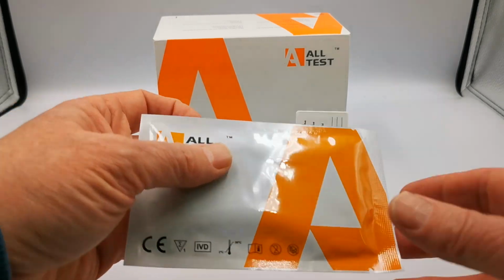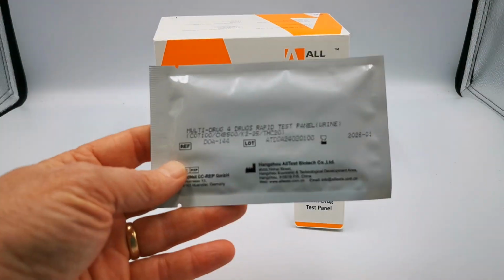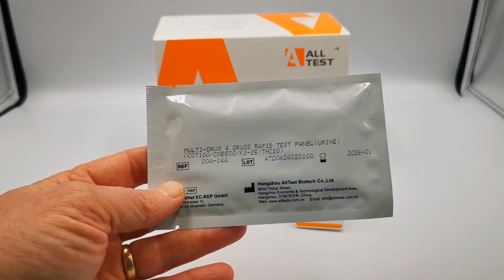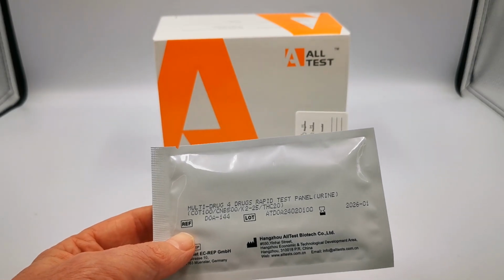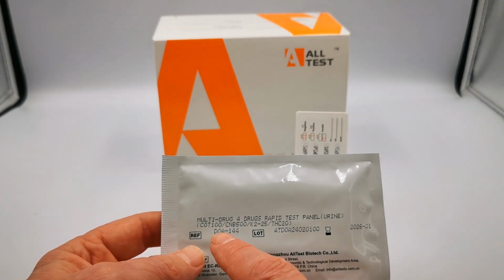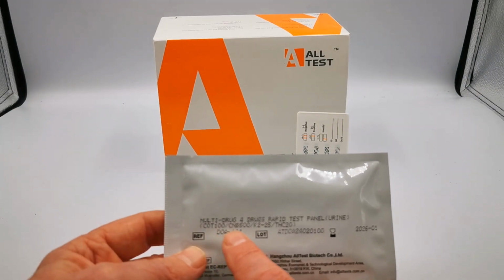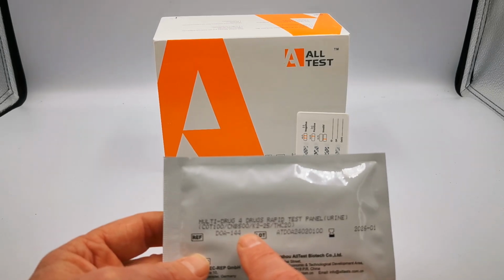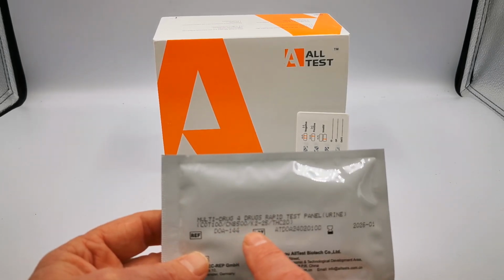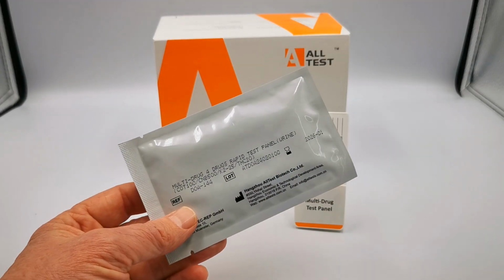This is the packaging. Just let me show you the rear, which basically will have the details of the test that's included. Now, this is a 4-panel drug test. It screens for 4 drug groups, and those are cotinine, which is the first metabolite of nicotine, so you're screening for nicotine in vapes; cannabinol, which is a metabolite breakdown product and screens for CBD; K2, which is the other interesting one we've added into this test.